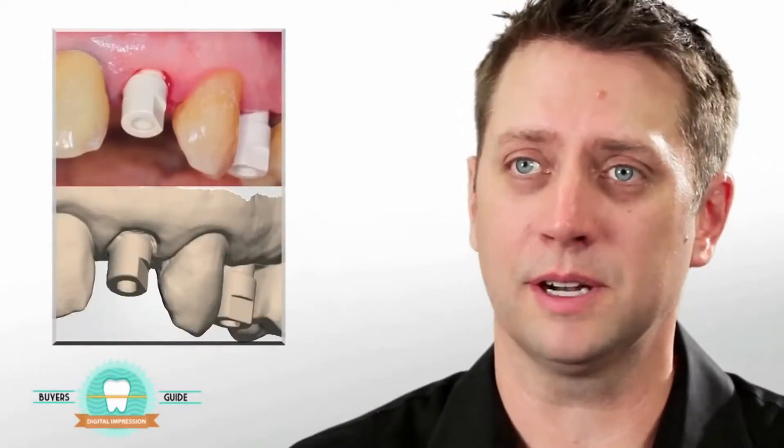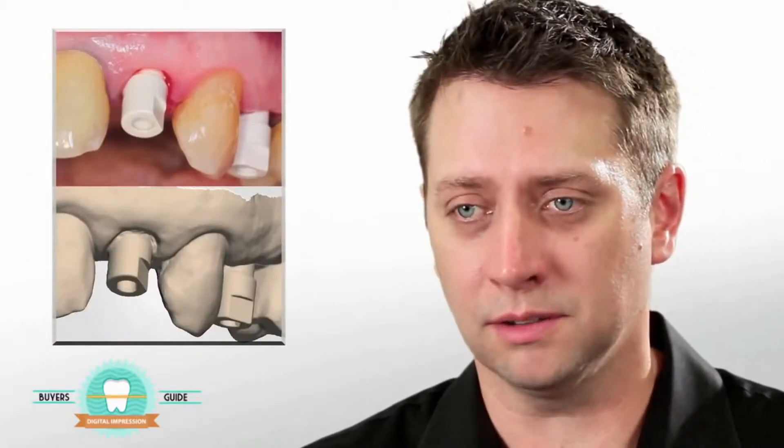Now that the lab has that impression they're gonna be able to turn it around faster back to you because you just skip through some whole steps of getting that case to them. You're also gonna find that once you get the case the restorations are gonna fit better because they were based on a more accurate digital impression. So the quality of your dentistry is gonna go up.